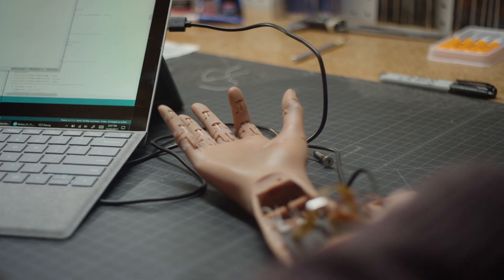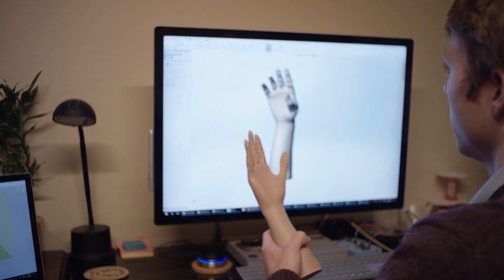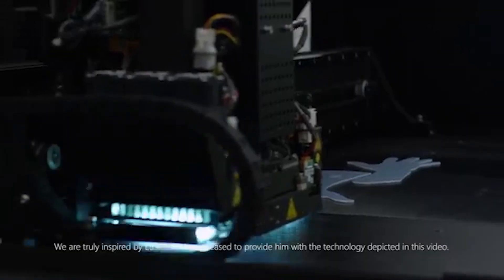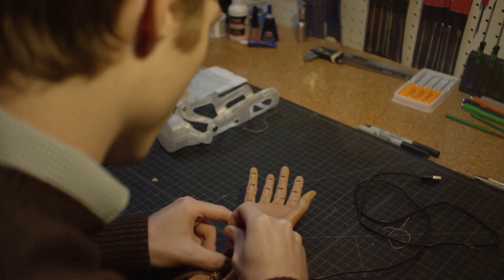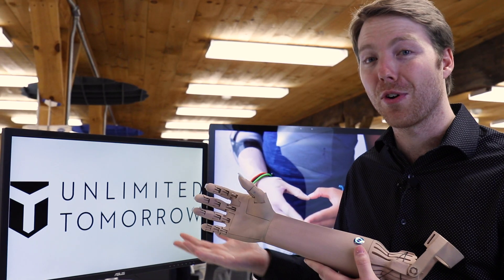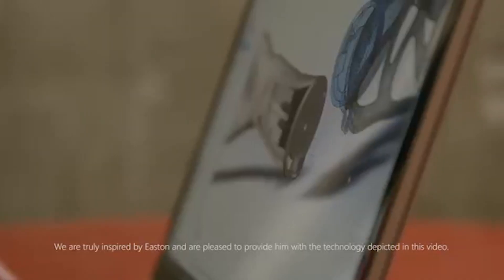You can see it's very humanistic — there's a lot of elements. We match skin tone. This is completely 3D printed using HP's multi-jet fusion process. It's in a very strong, hard nylon material but prints in full color, so you can match skin tone very accurately or print bright, vibrant colors. We even incorporate some very small details like fingernails that someone can pop on and off, even paint.